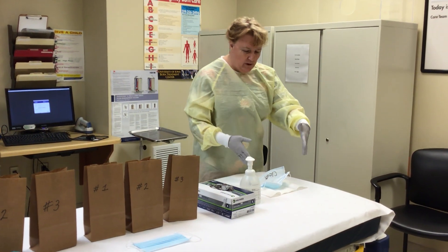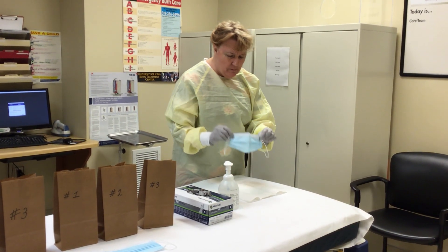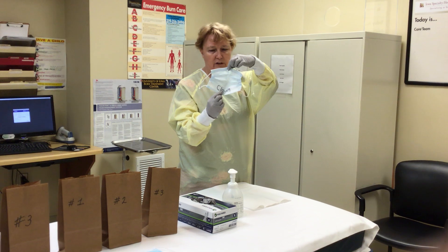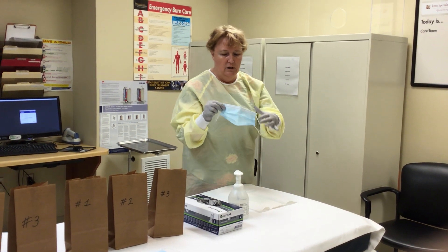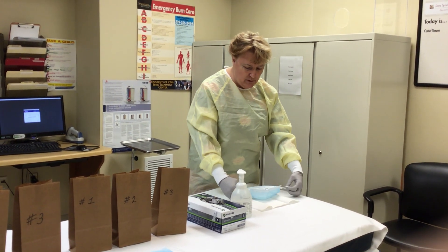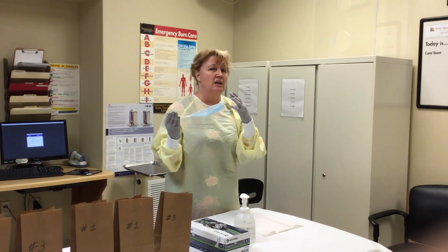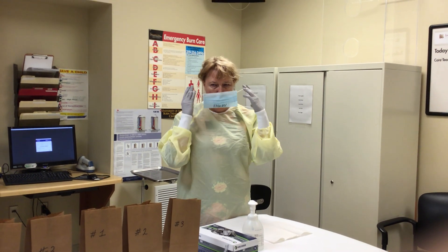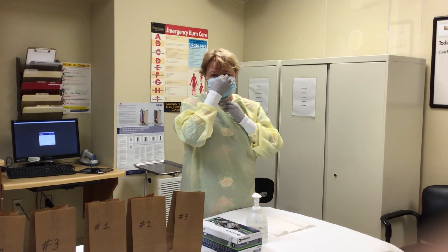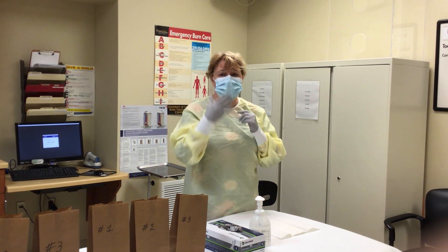You can see right here, we have our little paper towel laid out with our mask. I've labeled my mask dirty and clean. Here's the clean side — that's the side that's going to go against my face. The dirty side is the outside. So when we pick our masks up, it should be laying dirty side down. We pick our masks up by the loops, loops in our hands like this. Be careful not to touch the outside of the mask to your face — it is dirty. Loop around your ear, pull this part up, and make sure it is up against your nasal bridge about where you would wear your glasses. Pull the chin piece down so it has got your face good and covered.